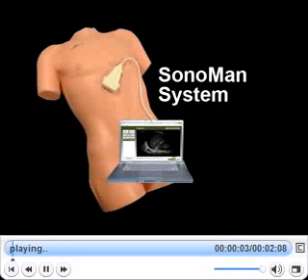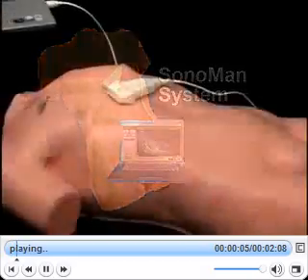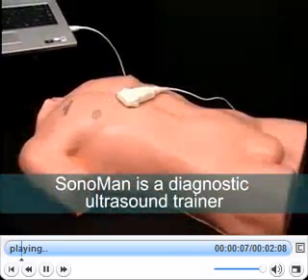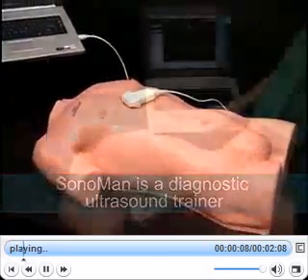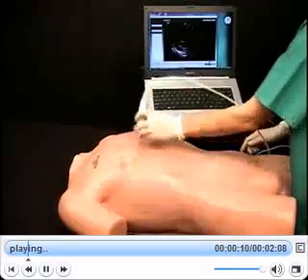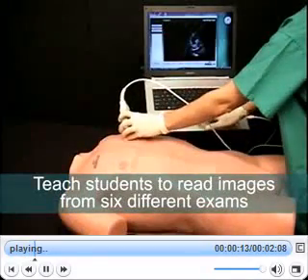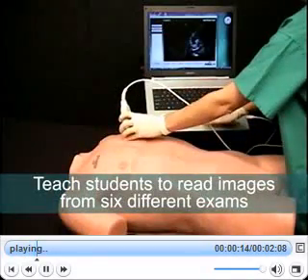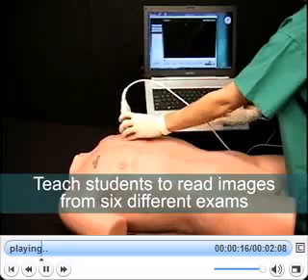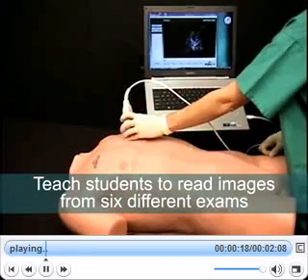The Sonoman system is not just a simulator. It is a diagnostic ultrasound training platform upon which you can build a comprehensive training program. Teach students how to read diagnostic ultrasound imaging from six different exams, or just choose the one that fits in with your current curriculum.